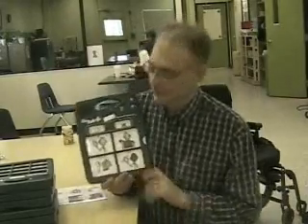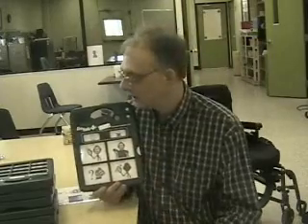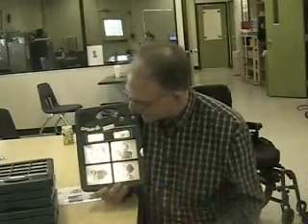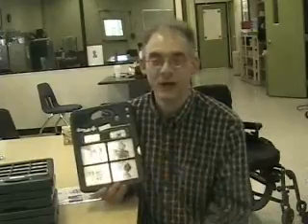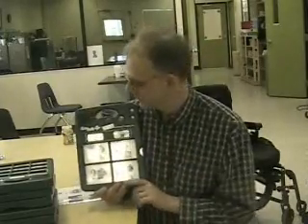This 4 Plus would be used for someone with limited vocabulary, limited cognitive ability, limited orthopedic ability. This is kind of an early learning tool for someone who's learning to use a voice output device. And on this one I have the expressions for conversation: hi, hello, I'm doing fine, how are you, and goodbye. Just very basic expressions for having a conversation.